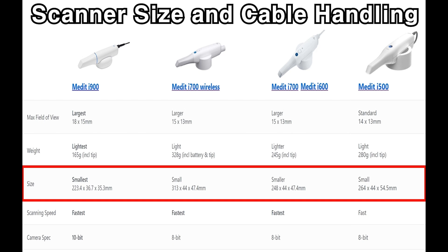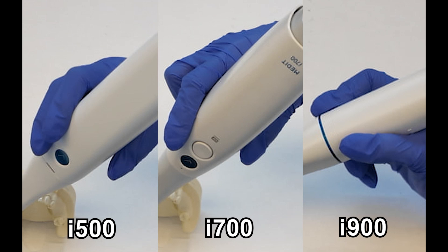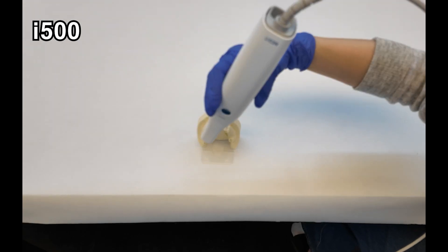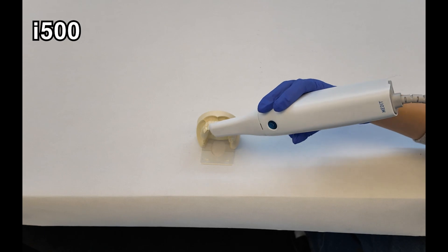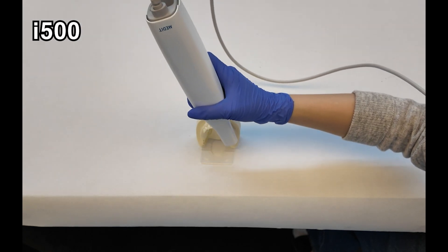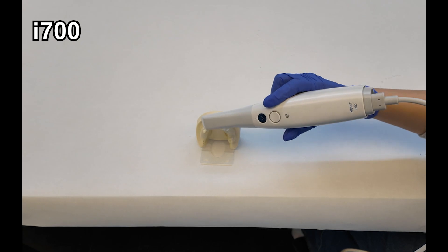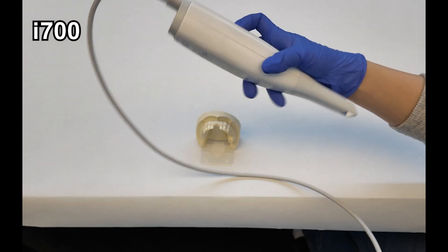Scanner Size and Cable Handling. There are also differences in the size of the scanner. The I-500 was uncomfortable to hold in one hand. When the I-700 was introduced, its ease of handling with one hand was a significant change and was well received in the market. The I-900 has become even smaller, about the size of a banana, which has improved grip. Another aspect to consider alongside weight and grip is the flexibility of the cable. The I-500's cable felt softer than the I-700's. Although the wired I-700 was slightly lighter, the inconvenience of the cable getting in the way made the wireless I-700 more popular.